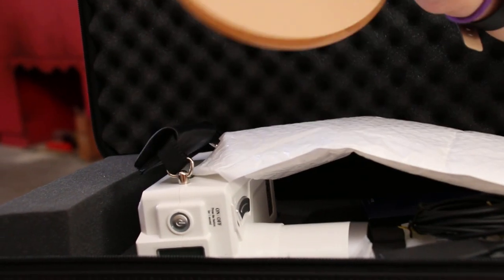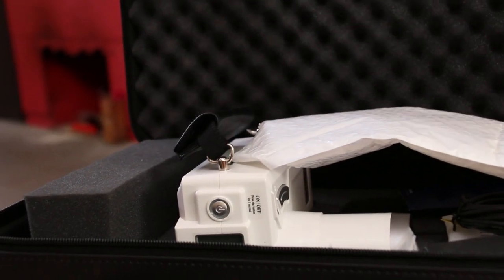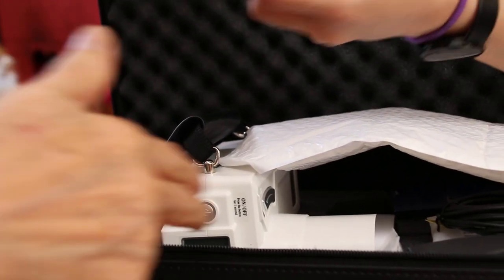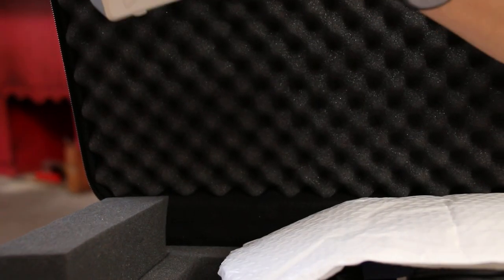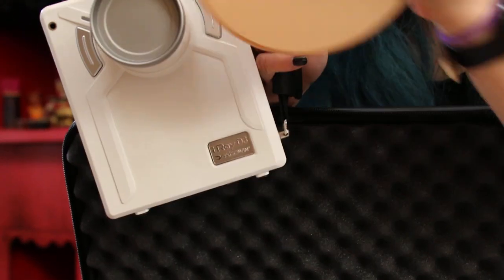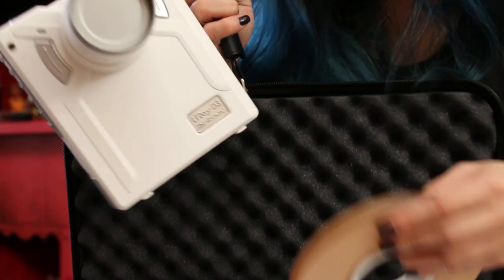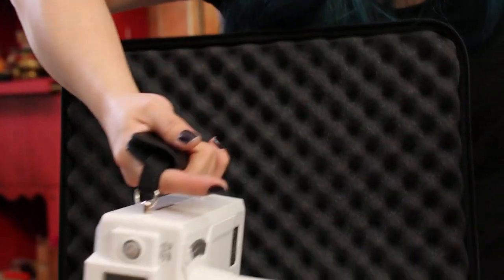I haven't taken out the film yet. So it's supposed to be transparent. This is a 0.35mm lead equivalent. So it's supposed to get inside through here. So it protects the radiographer from scattered x-ray.